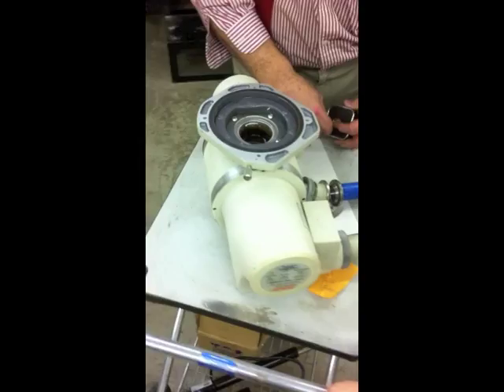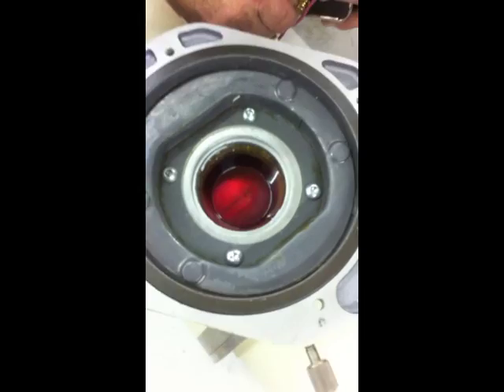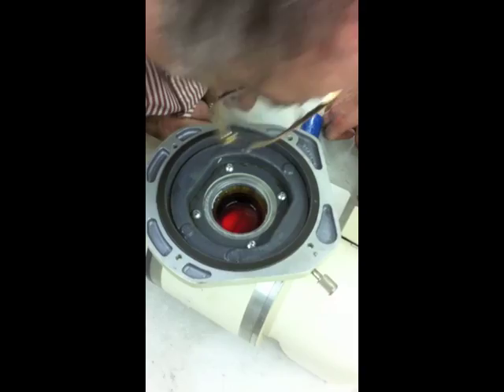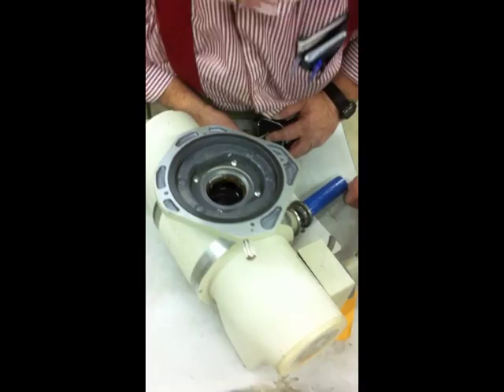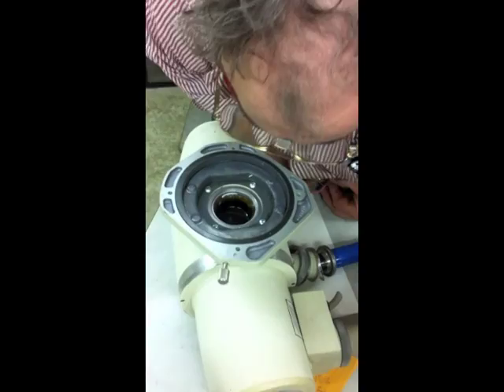I'm going to stick your fingers there on it. There it goes. We're glowing filaments with the x-ray tube. We've got it hooked up to a battery — a six-volt lantern battery.